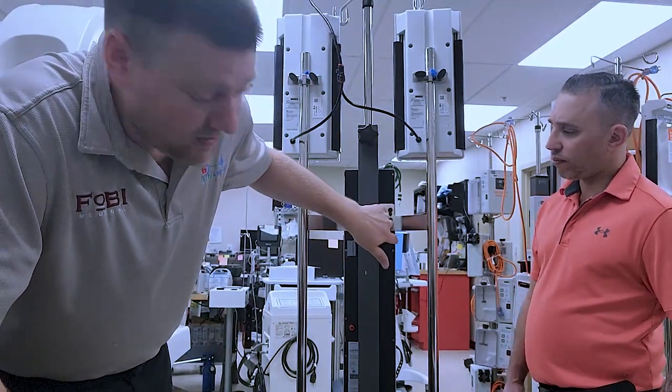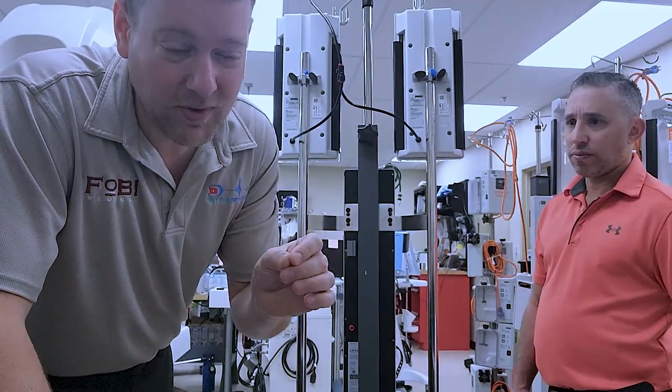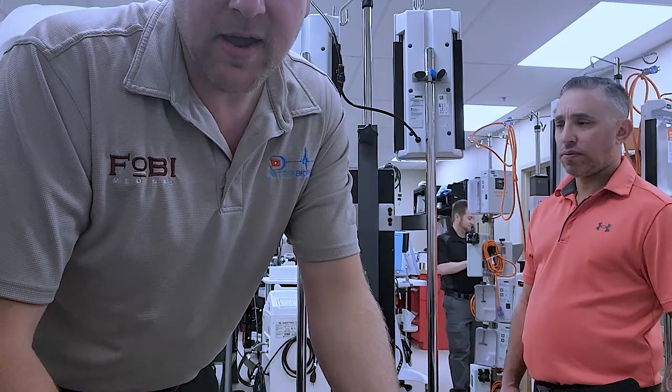One-eighth inch Allens that are holding the unit on. They're already loosened. So what we've got to do is lift it off. So let's take all the number ones out and then we will proceed from there.